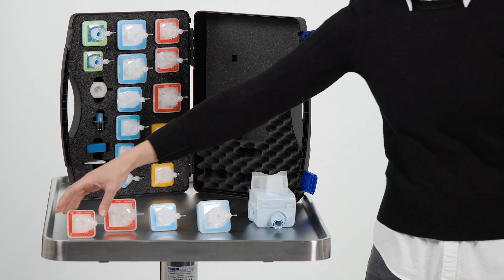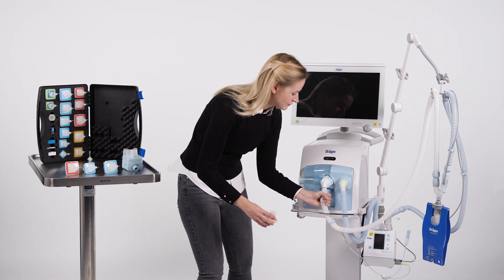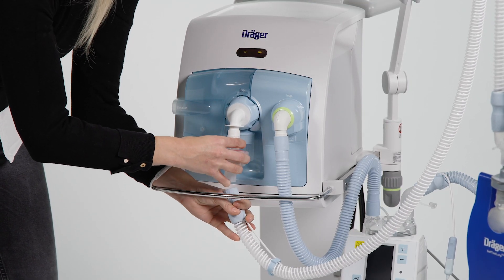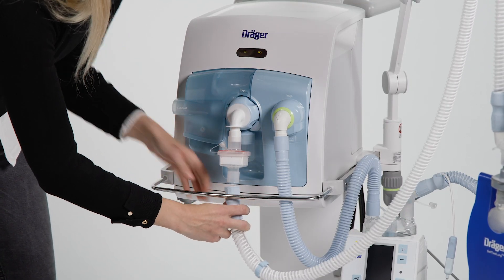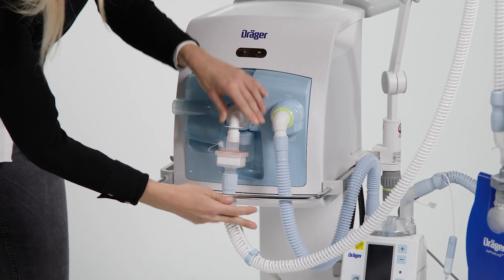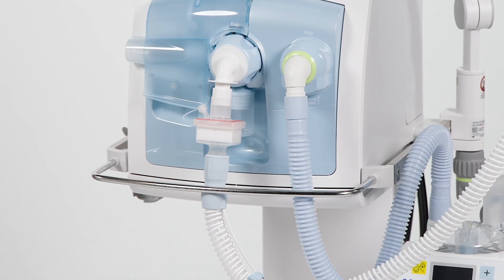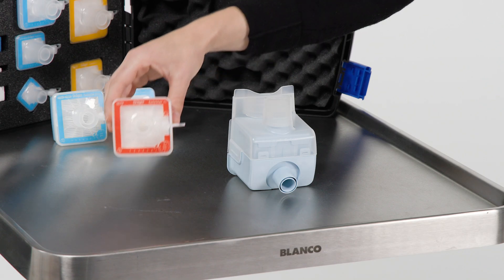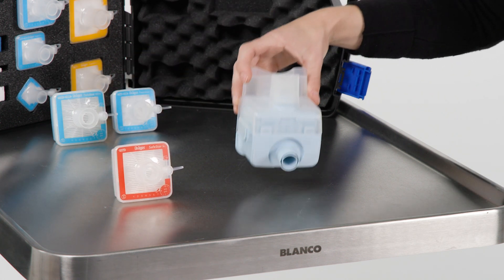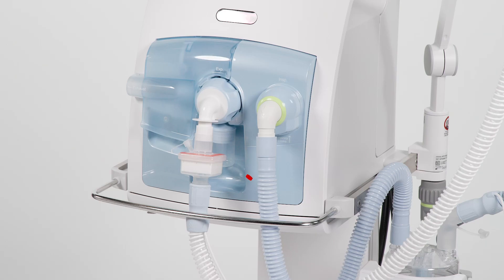Placing a filter in the expiratory branch before the expiratory valve is recommended to protect the user and the ventilator. A mechanical filter is recommended for this purpose due to its hydrophobic properties, as it offers constant filtration performance in a system with active humidification. In this example, a SafeStar 55 plus is used. A SafeStar 90 plus or an expiratory heated filter (EHF) could also be used here.